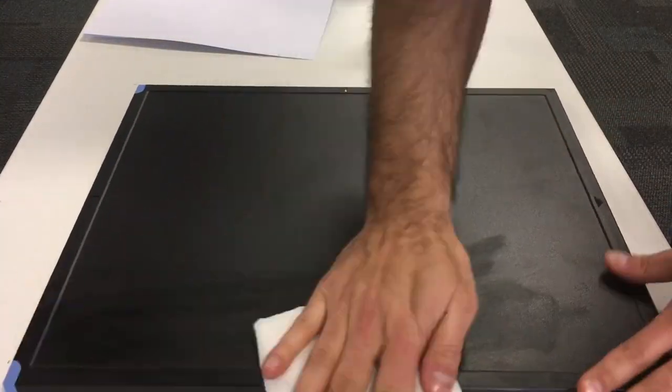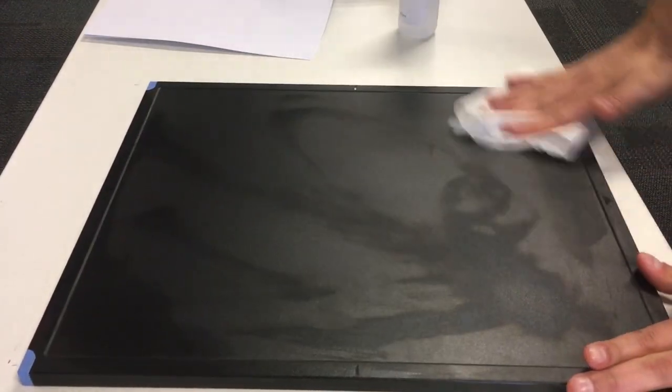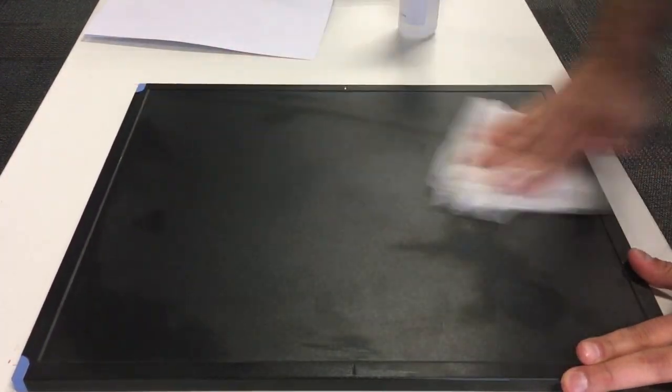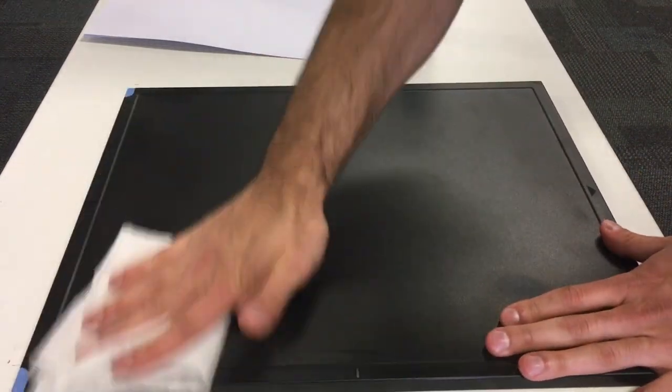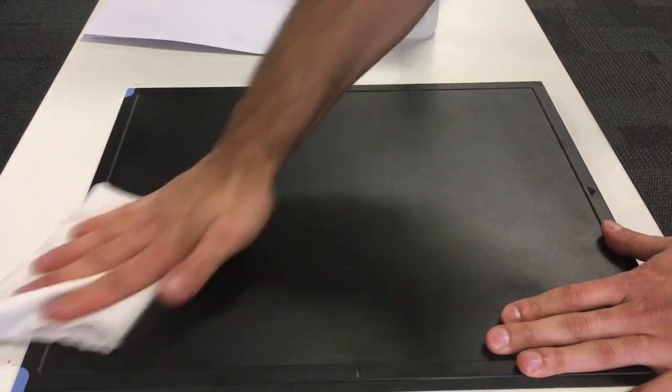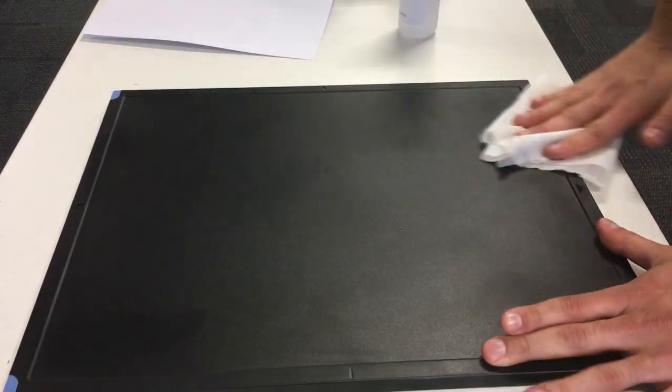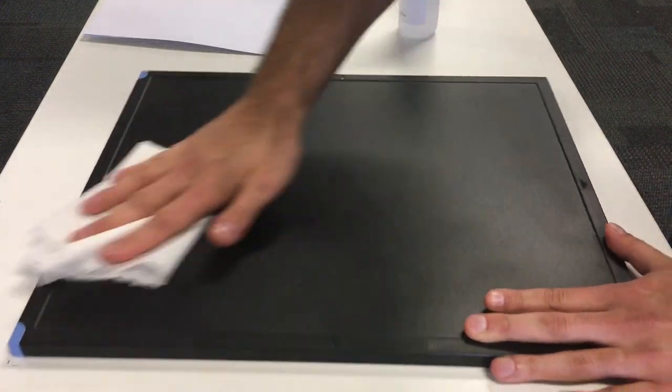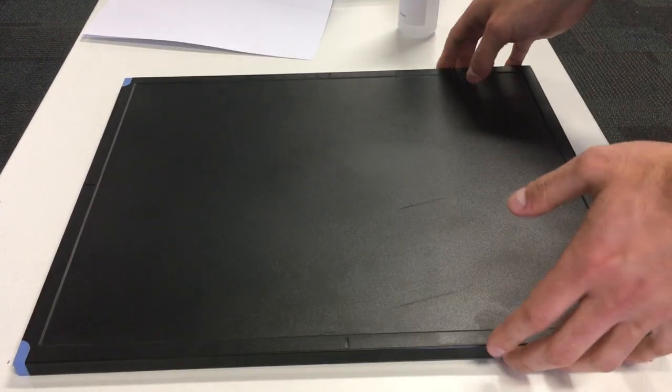Turn it around. Just go nice and clean in the corners. Make sure there's no contaminants or any sort of body liquids that may damage the plate.